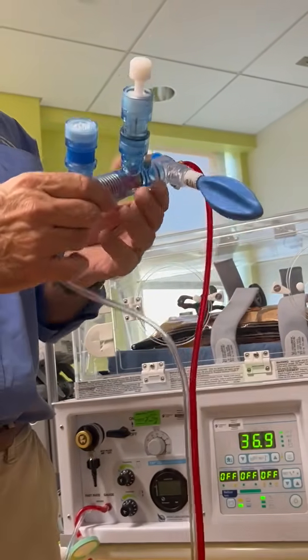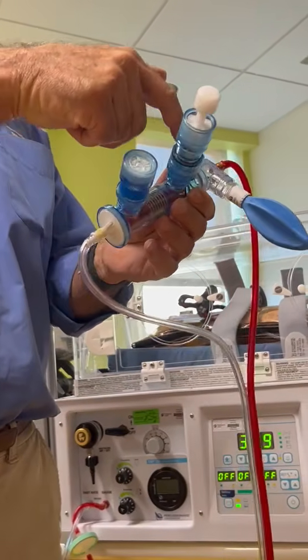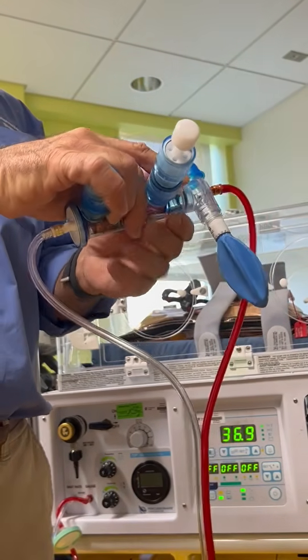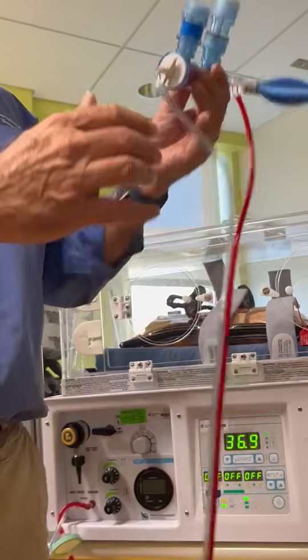This is just our monitoring port. And I'm assuming y'all tee in your nitric in this port, right? Yes. And then you measure in this port, right? Yes. Okay, all right, cool. Well, anyway, phasitron on my left hand.